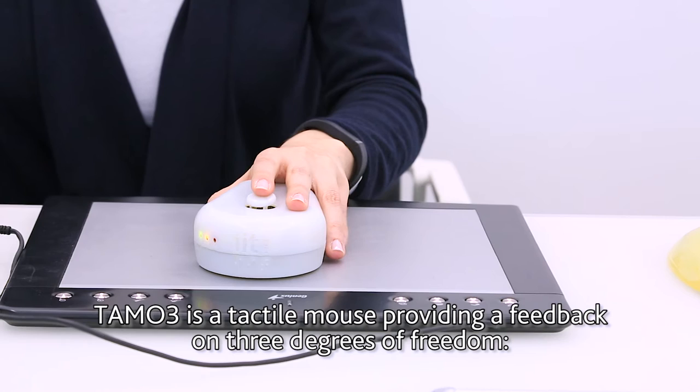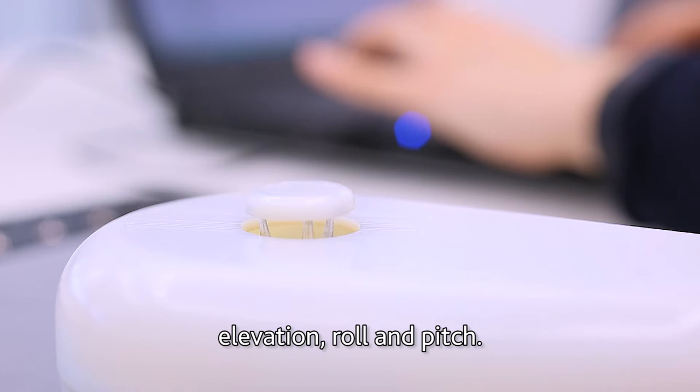TAMO3 is a tactile mouse providing feedback on 3 degrees of freedom: elevation, roll and pitch.